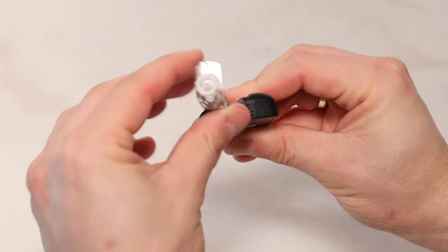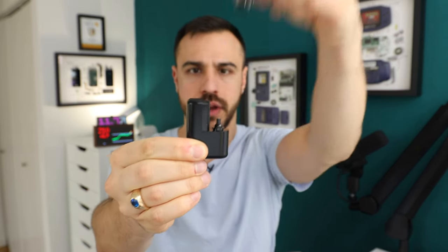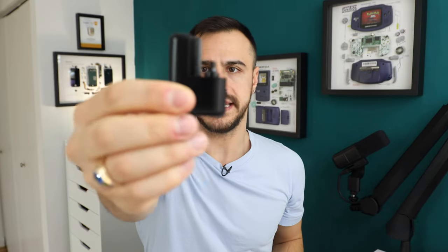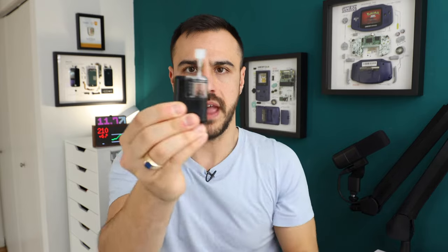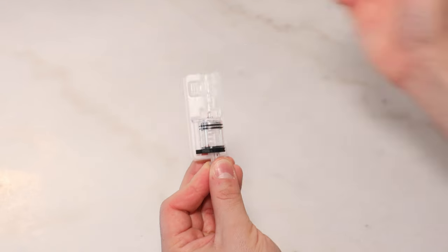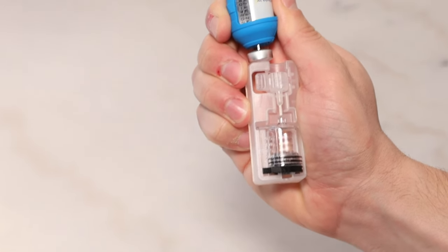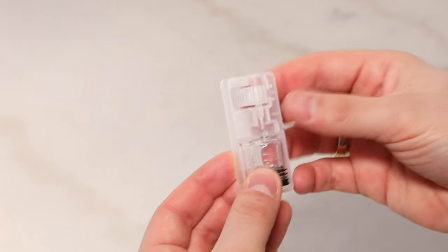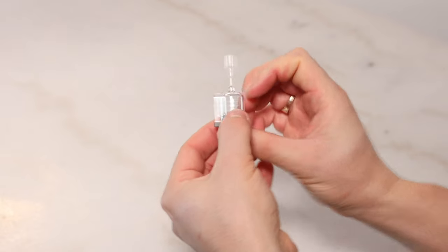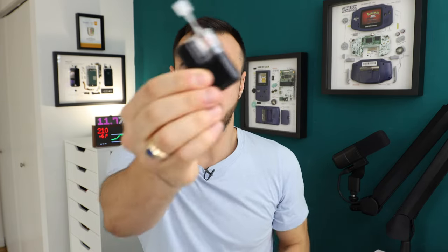Let's talk about how you refill the pump. Each time you refill it, you get a new cartridge. The cartridge is on top — it swivels out and comes right out, and you're left with the main pump itself. When you get a new cartridge, you slide it in and there you go. Before putting it on, you fill it with insulin. Each cartridge comes in a pack and this is where you refill it — it expands down as you add insulin and you can fill it with up to 200 units. So because that's the max, this may not be for everyone.